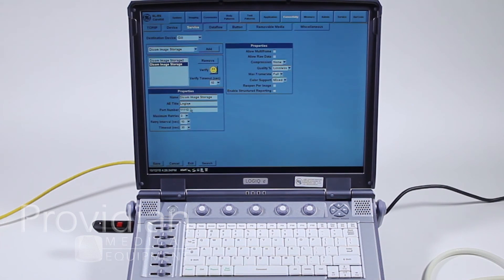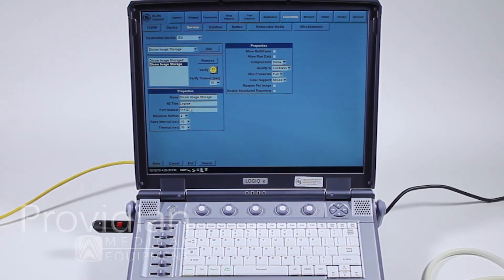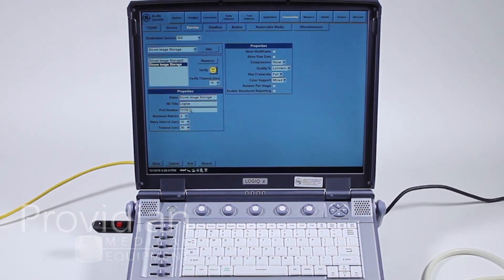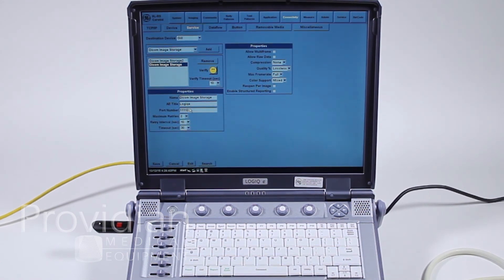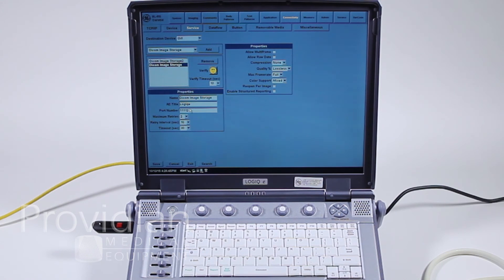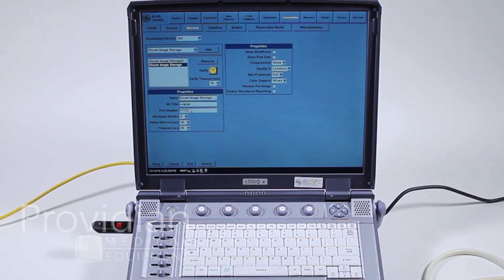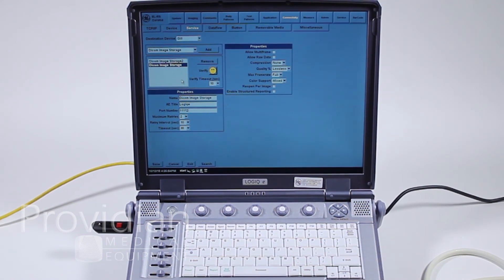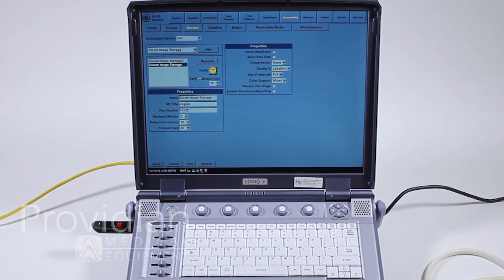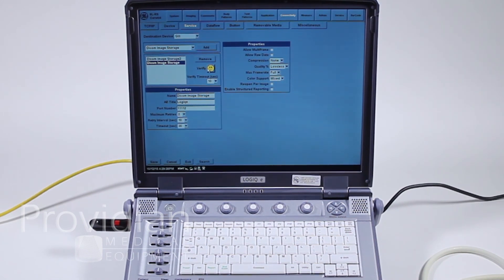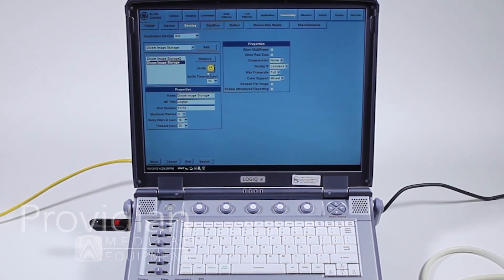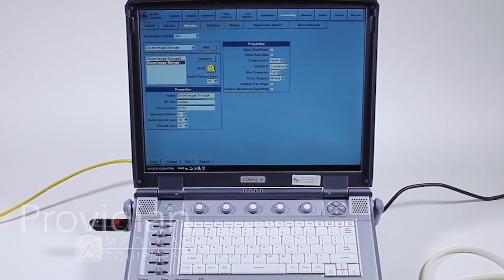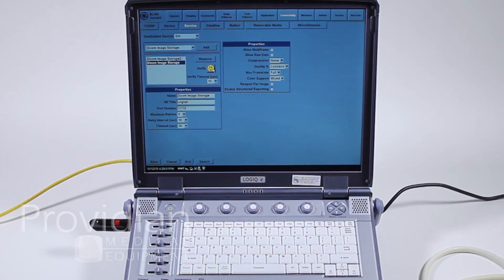Next most important thing is this port number here. They have to give you a port number, and it has to be the correct port number, or again, the DICOM server will not accept your images. You must make sure you get those. You'll need to speak to your IT professional and the person in charge of the DICOM network in order to get your machine on your own network, and then to transfer it to a DICOM server on-site or off-site, you need this information. You need to talk to two different people to do it. Here I'll go ahead and click verify, and boom, I've got my smiley face. Theoretically, this should allow me to send images across a network.